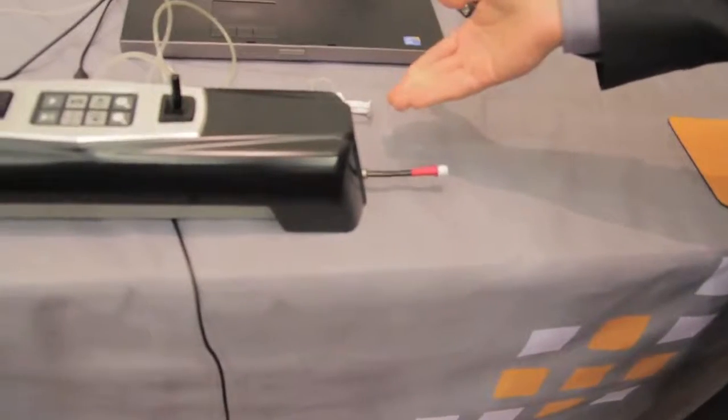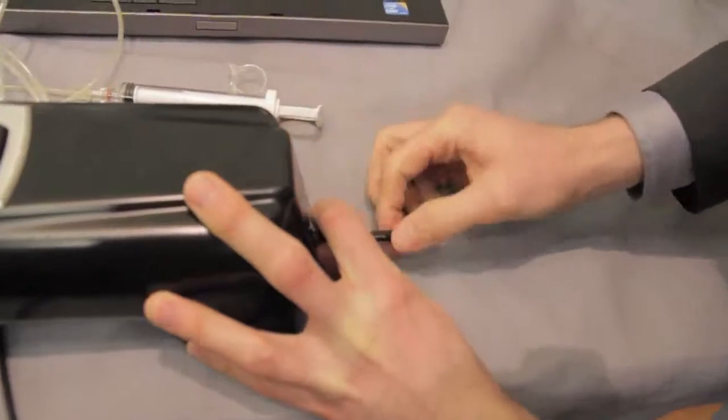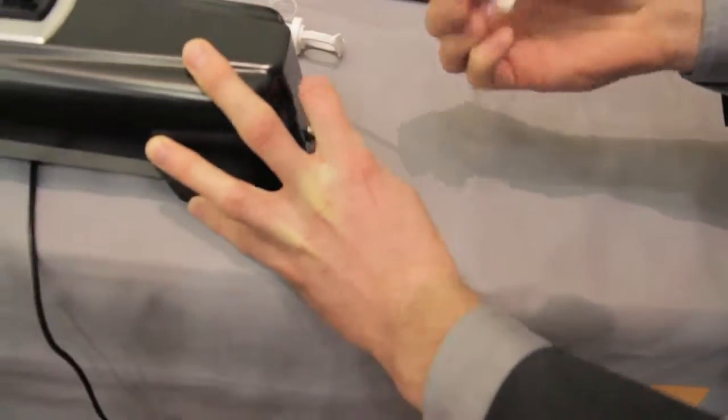To remove the introducer for future reference, we have a black ring. Push in the black ring and then release the introducer.